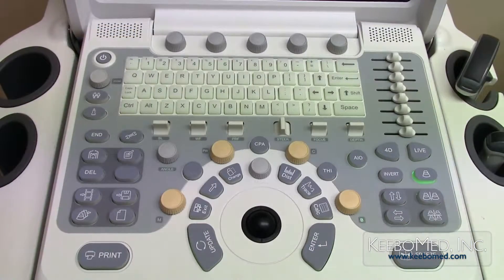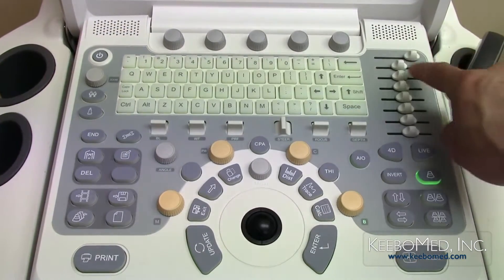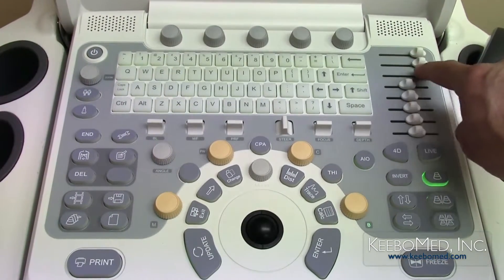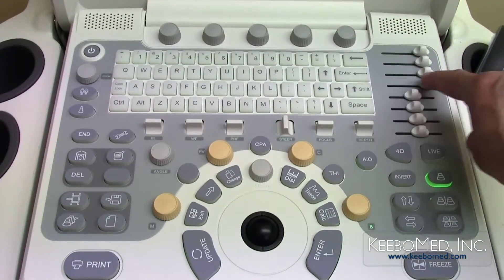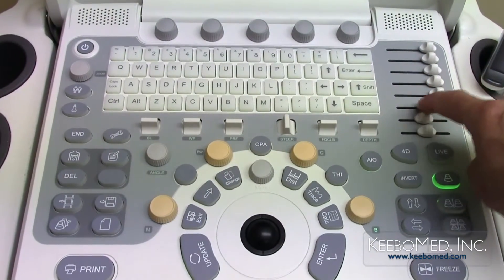Number 2: the TGC slides on the upper right of the keyboard can be used to adjust the gain at different depths.